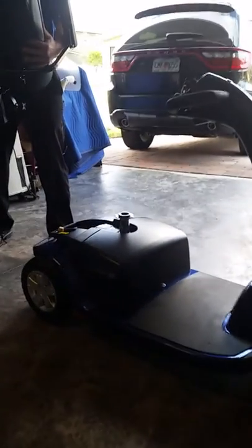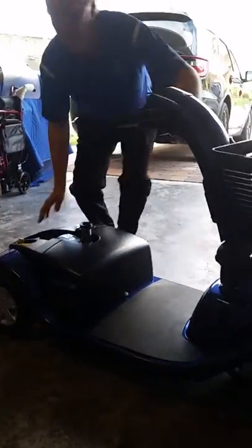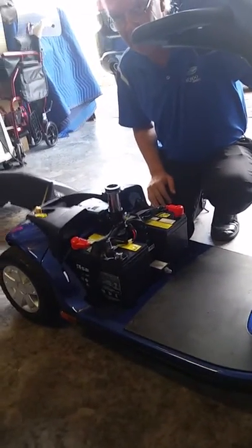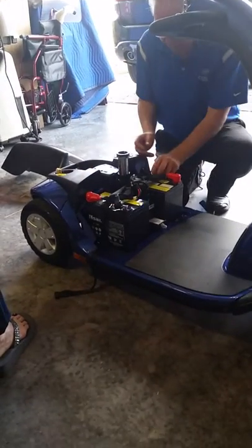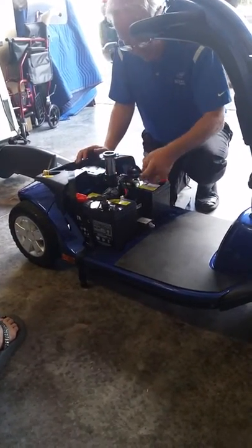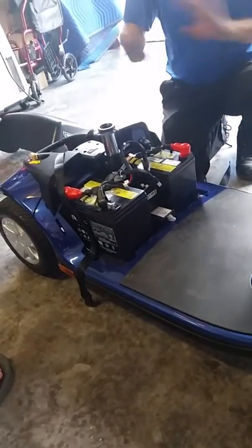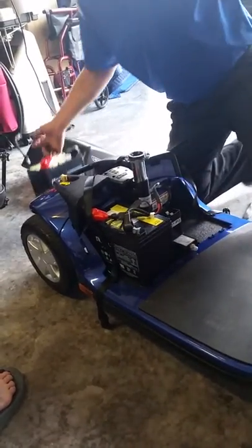With the oxygen holder, that's about 30 pounds. The arms flip back and forth and you can move it around. Right here — this is the fun part — there's your two batteries. Whenever you want to take this apart, I'm assuming this is when the grandkids come and they're going to take grandpa down to Disney World. Find the buckle here. Each battery has a rubber handle on it. These two right here are your plugs for your batteries — you unplug them, black to black, white to white. Grab the rubber handle, lift — that's 30 pounds.